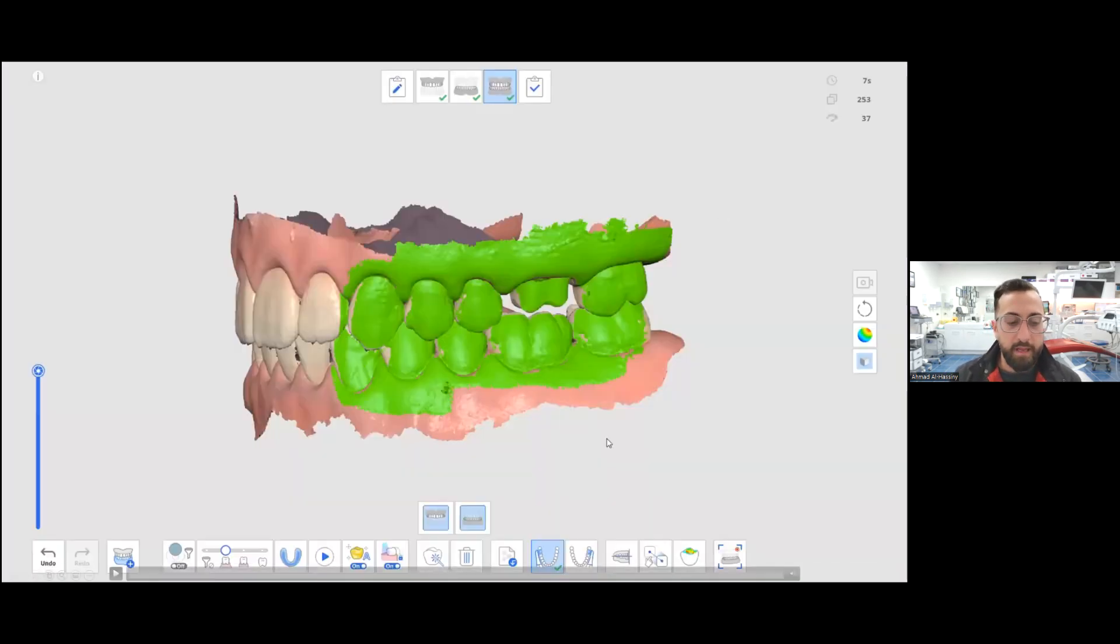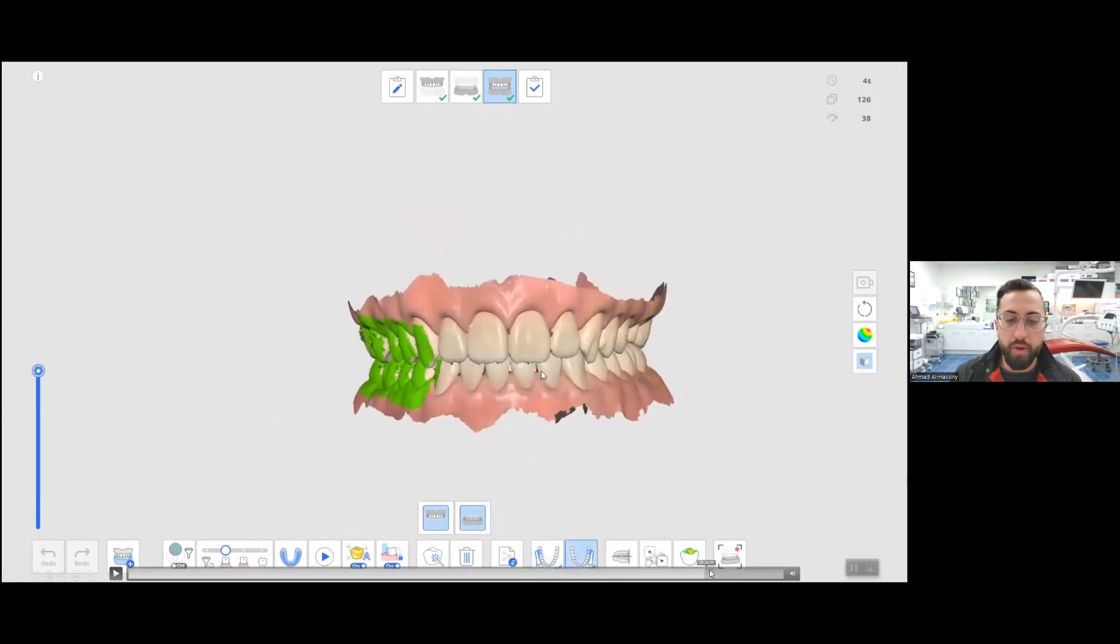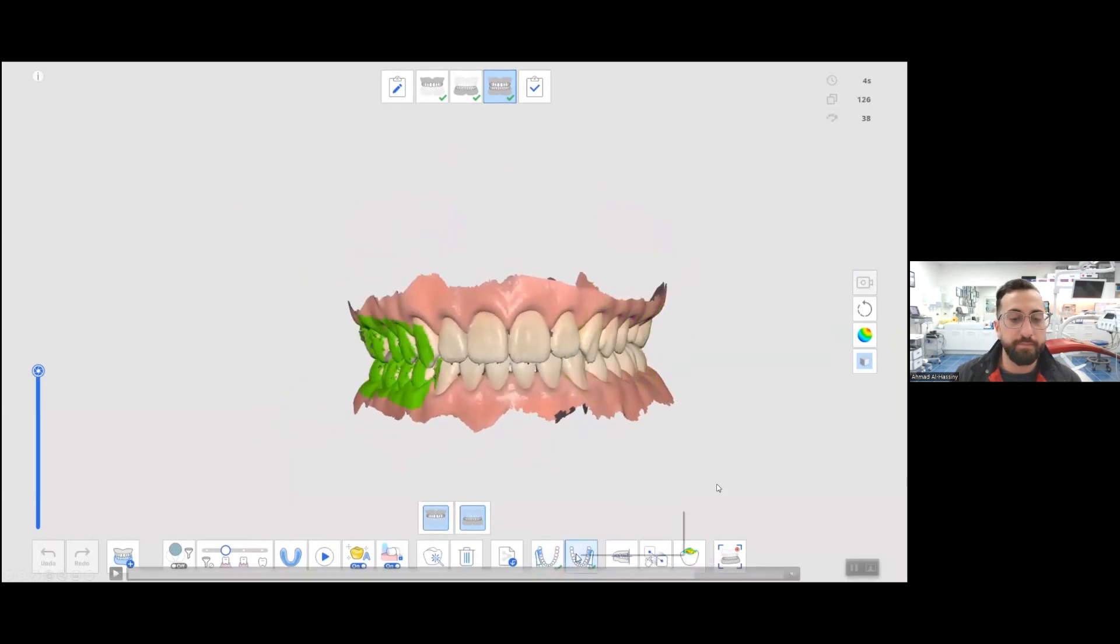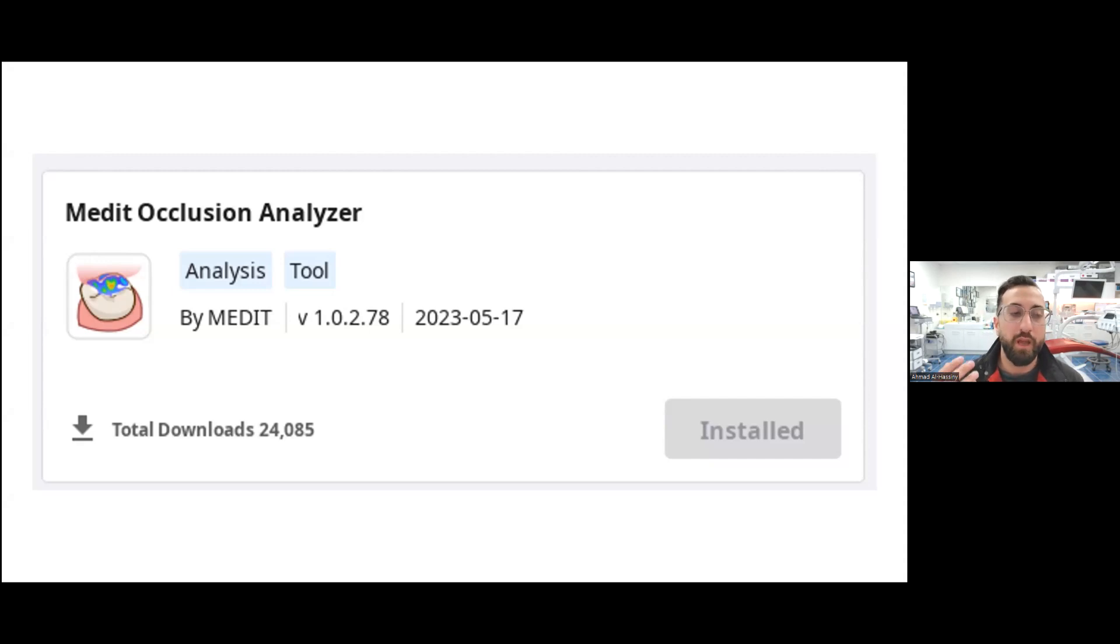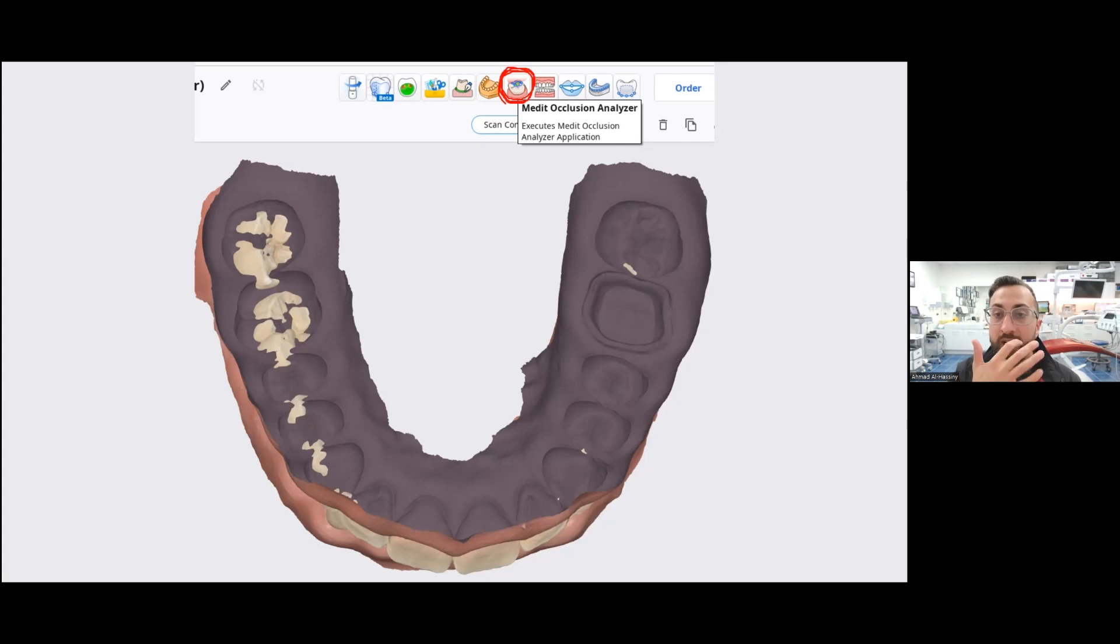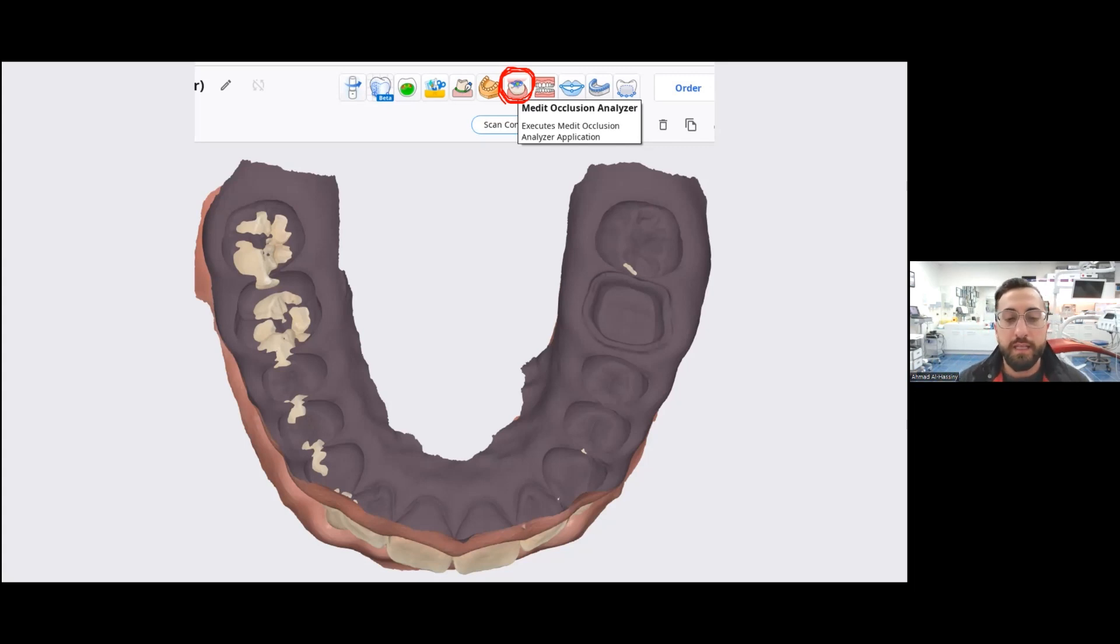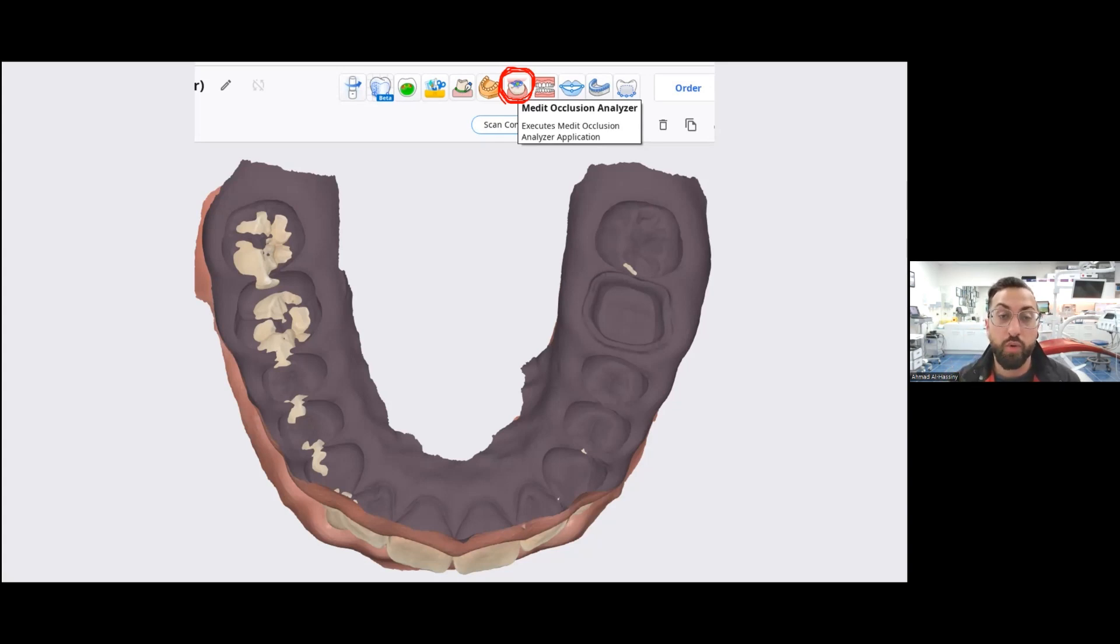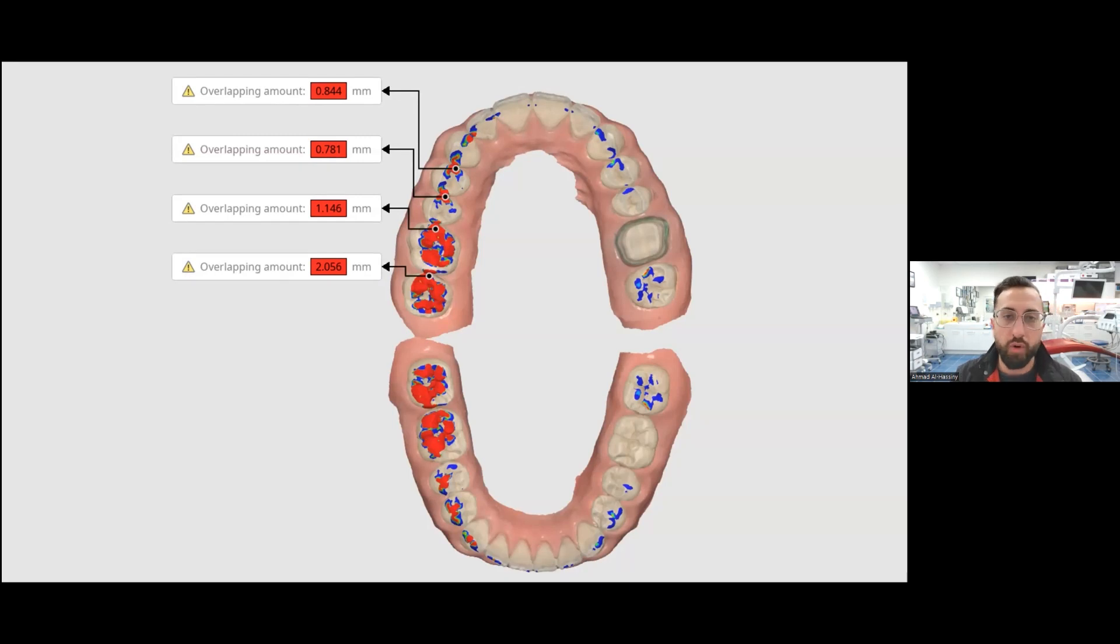And then it becomes a question, there we are, we have the two bite scans, one on each side. Now, interestingly enough, because this was an ongoing thing with many users, Medit released an app, Medit Occlusion Analyzer. So when everything else has failed, you didn't check the scans and you let the patient go, this is the last option you have to correct this before you send it to the lab. Of course, you can keep playing with the manual alignment, but this is also a good opportunity if you have some questions or you're not 100% sure if the bite is correct. When you start this app, immediately it gives you a report like this, automatically all generated by AI.